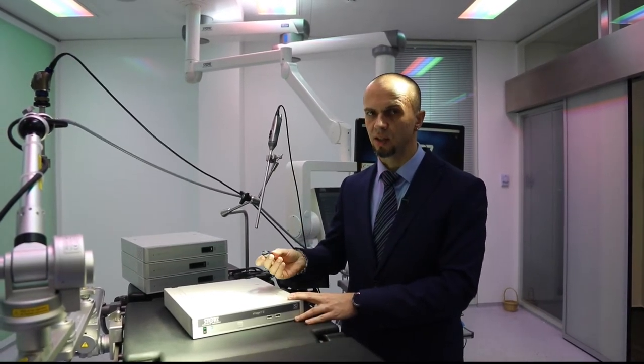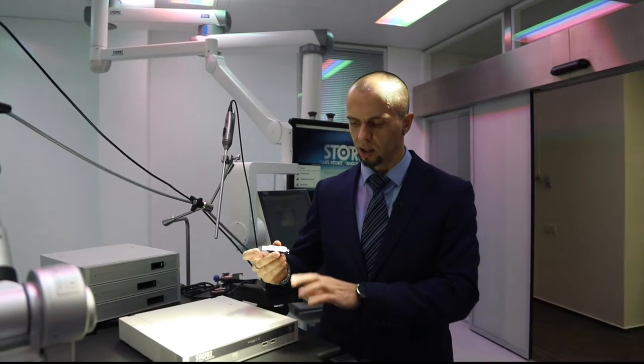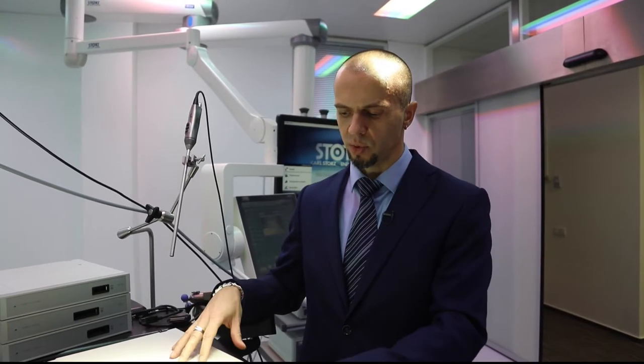Есть FAT16, NTFS, различные не виндоузовские форматы, но камера корректно поймёт только один формат — FAT32. Любой компьютер умеет это форматировать. Камера сама форматировать не может: как любое медицинское устройство, она не имеет права стирать данные. Это юридические ограничения. Форматируйте на внешнем устройстве, на любом бытовом компьютере, который не содержит вирусов, и после этого пробуйте использовать флешку здесь.